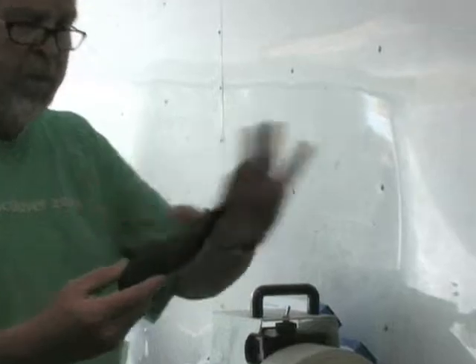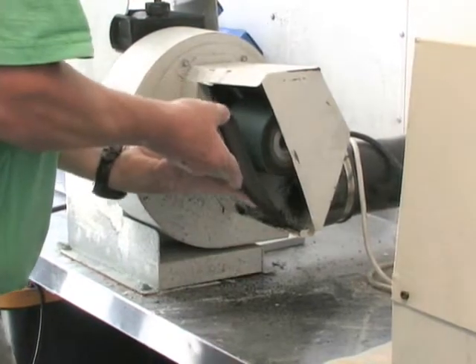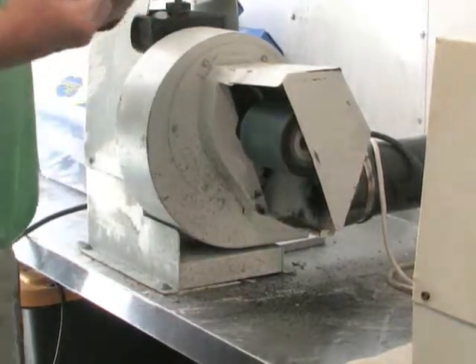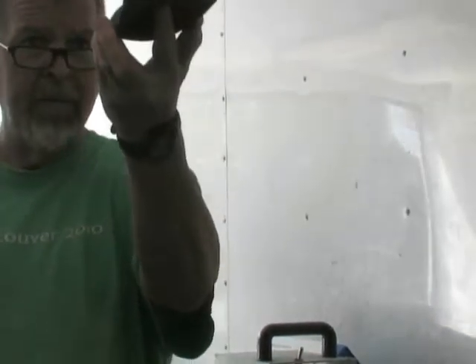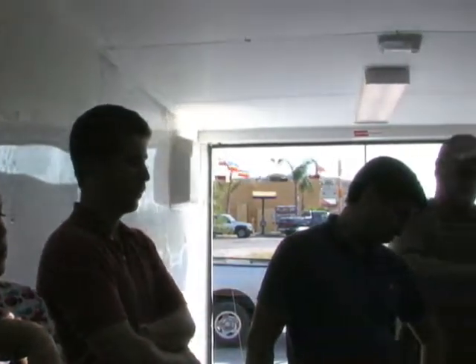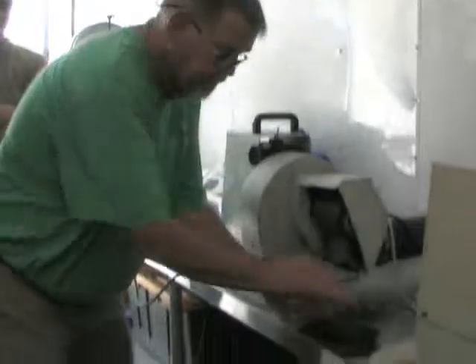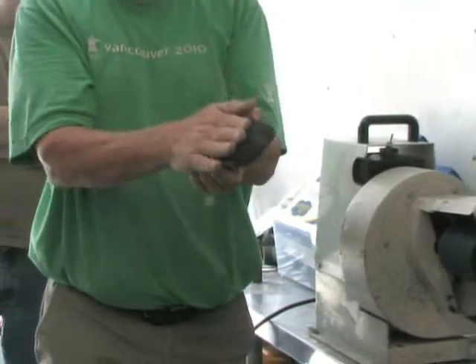It can't be full width right here — it's going to move just like your Harris mat did. I start moving it back, nice and flat, all in one line. Looking down from the rubber point back — nice and flat. I want that to be balanced, working off of one and five. From this point to this point it's flat. My posting is all incorporated into this — everything that you did in the cast is transferred right into this shell.